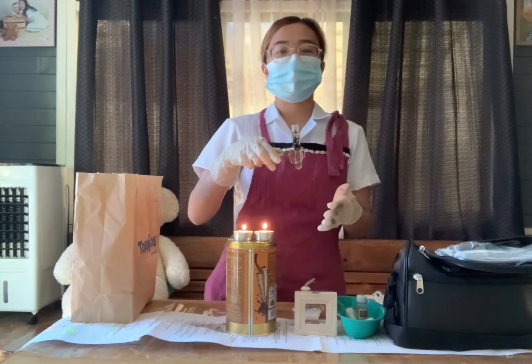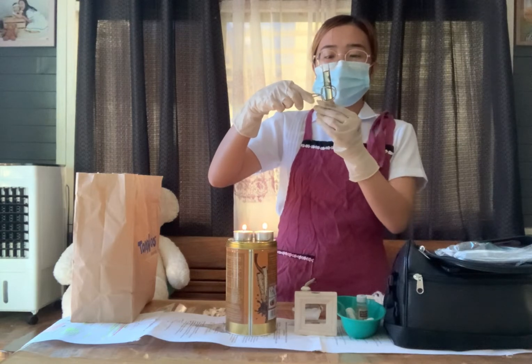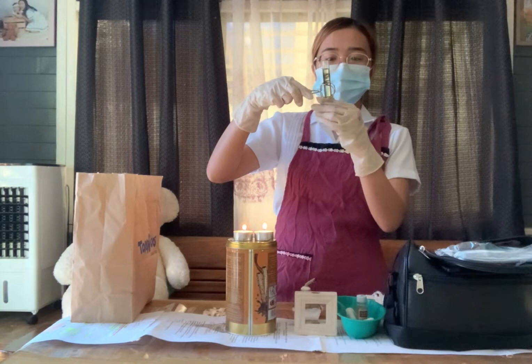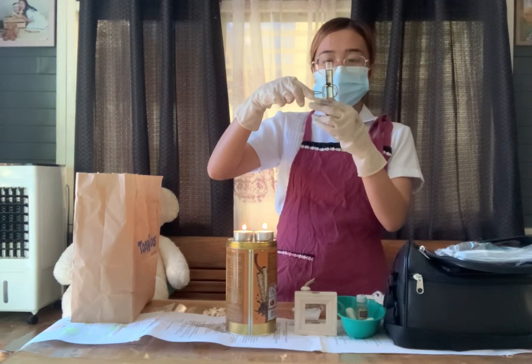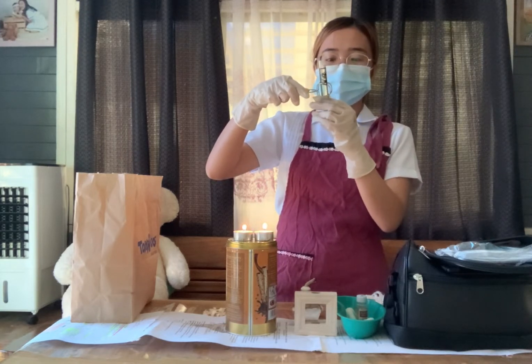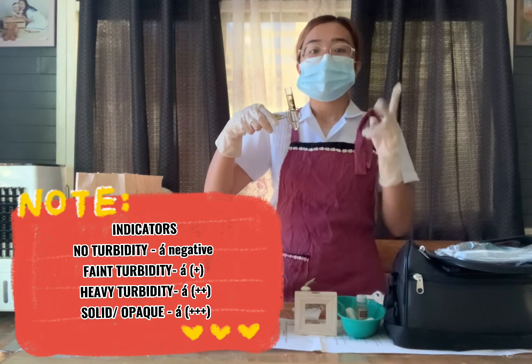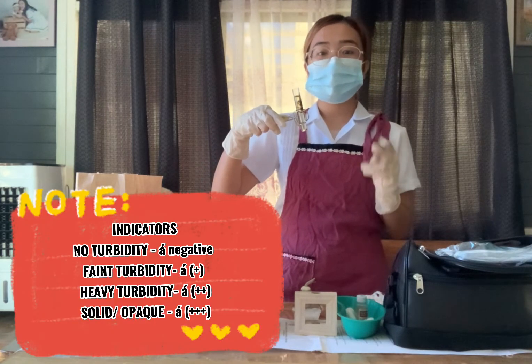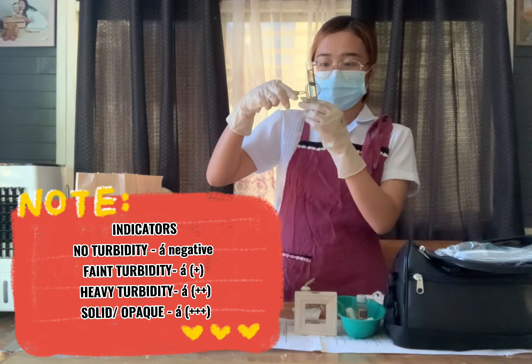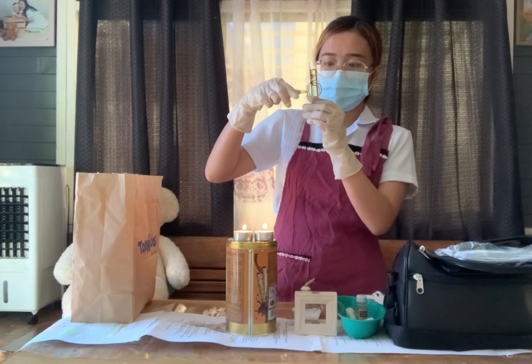After heating the test tube, make sure to note any change in color in the urine sample. Note the indication such as: no turbidity, faint turbidity, heavy turbidity, and solid or opaque. You need to assess your urine sample based on these indicators.